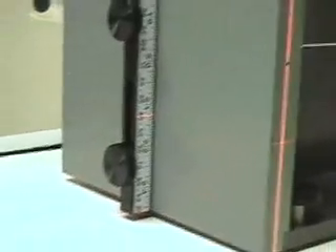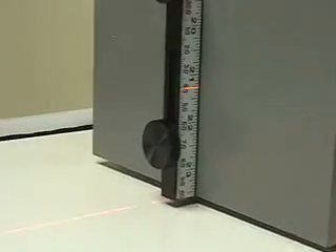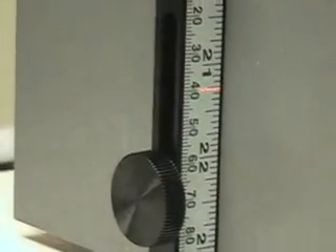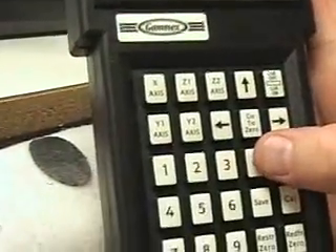And then you look on the ruler, and we're pretty close. I'm going to move it up one tick and enter that. And then just enter that. And do the same thing again by using the down arrow and centimeter to go to negative five. Negative five. Down arrow.